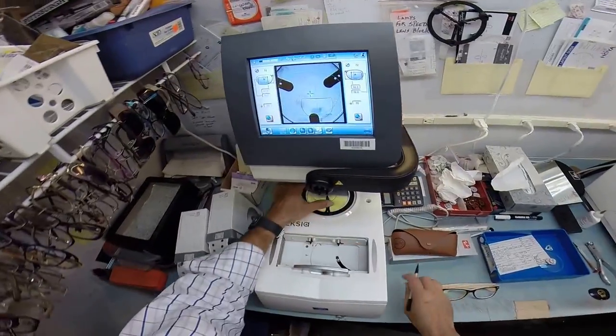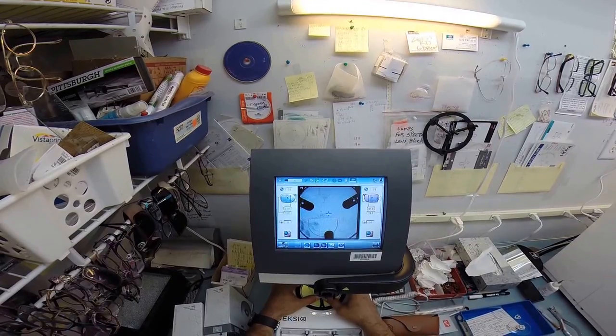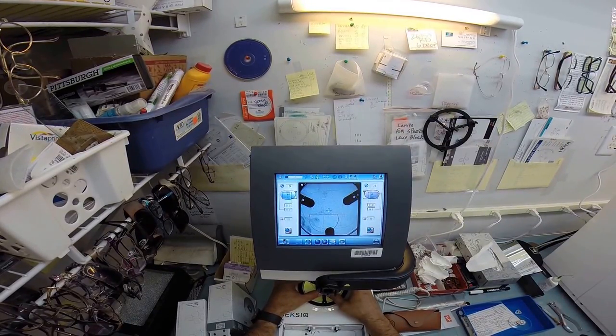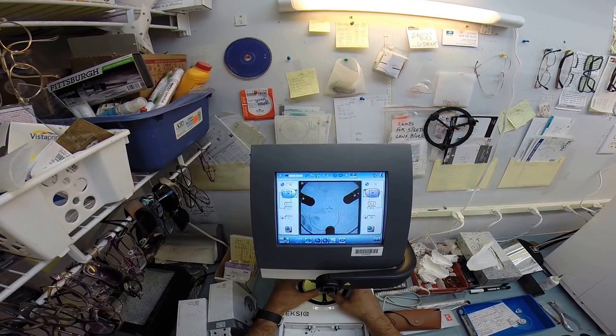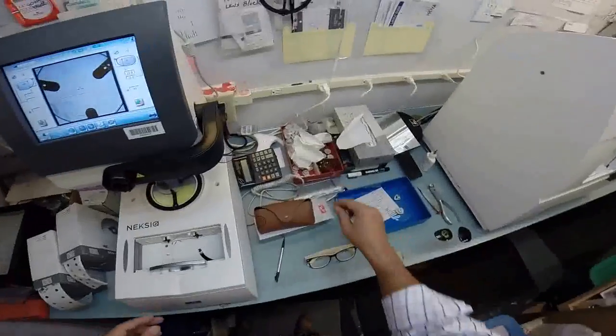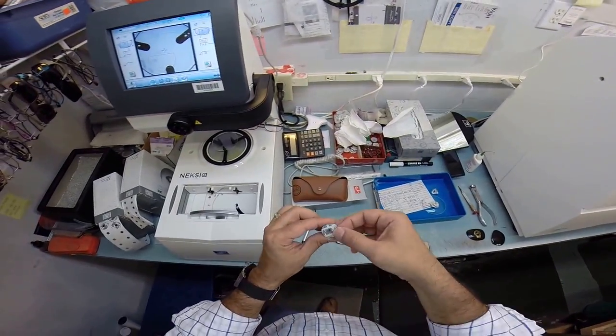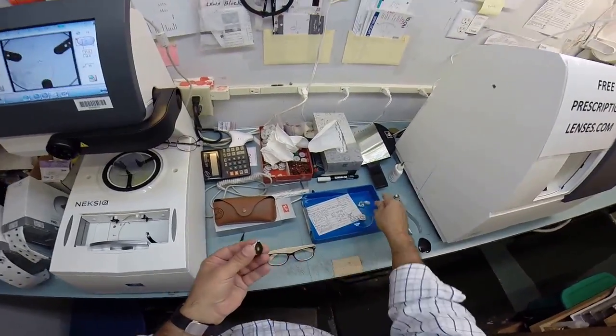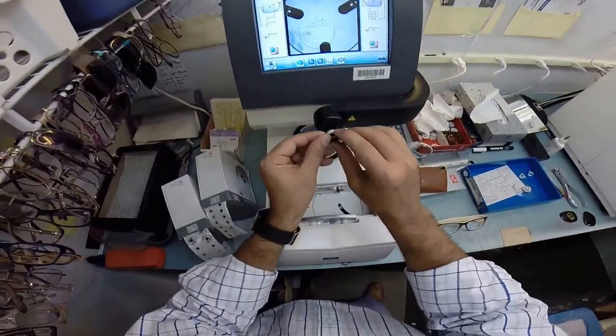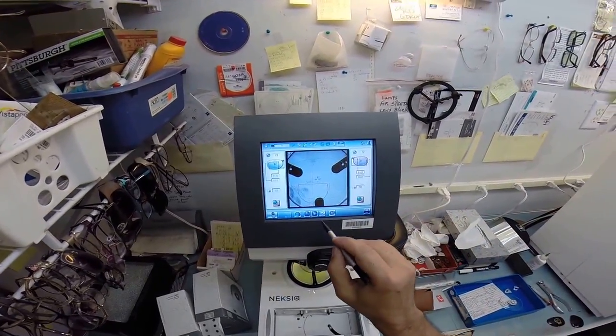Let me do the same thing now for your left lens. I'm going to get that in there where everything is nice and level and sitting where it should be. Okay. Now let me get another block. Put another sticker on there. I apologize for this being awkward and clumsy. Talking about being creatures of habit I've used the same edger for six years. Now I've got this thing and I've got to learn a lot so I'm nervous. I'm self-conscious about everything.